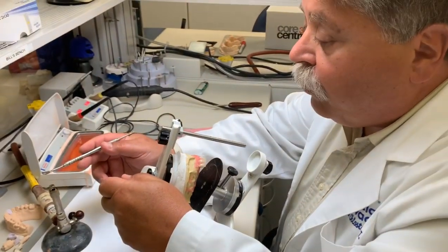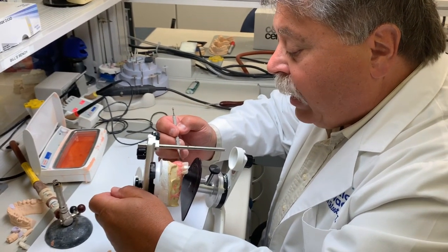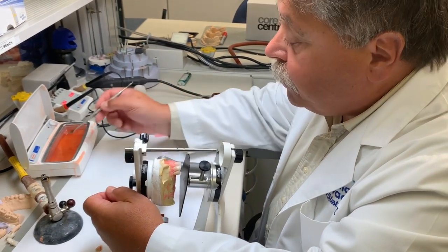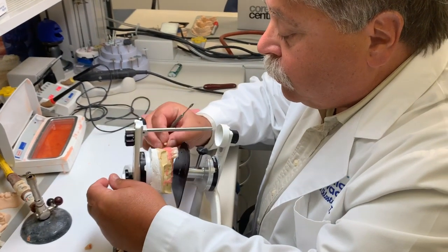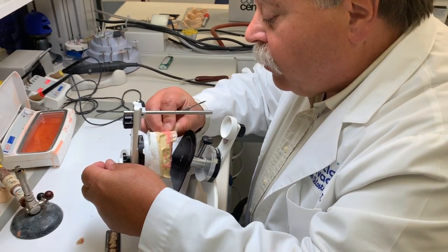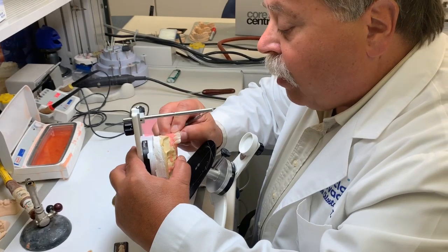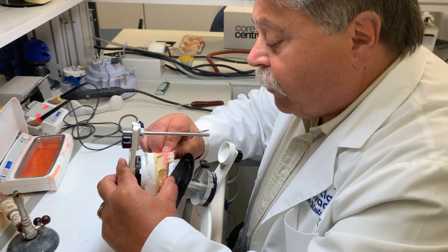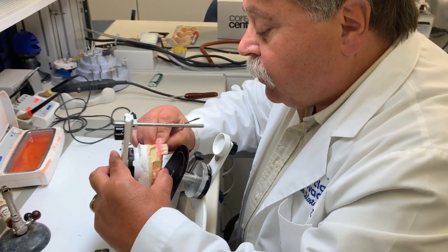Once we get it into the acrylic form, it can be changed, but you're really starting from scratch again. So basically, when patients are doing their wax try-ins, they should really pay close attention to the details, the little details, and to see if they like the teeth, the color of the teeth, the shape of the teeth, and the arrangement of the teeth. Those are all very important things, as I know.